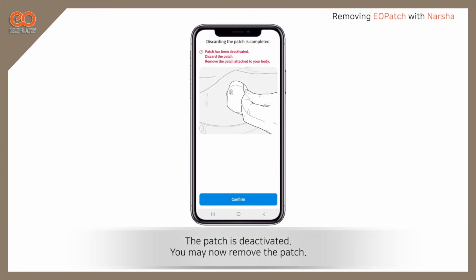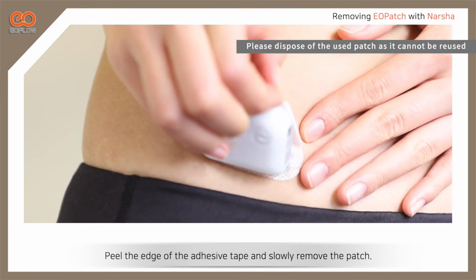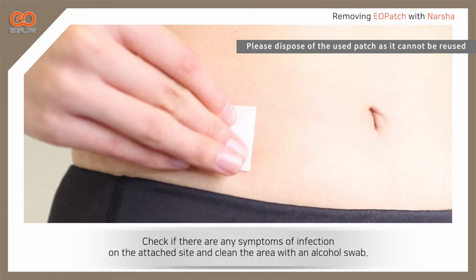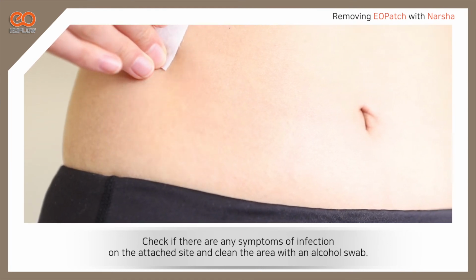The patch is deactivated. You may now remove the patch. Peel the edge of the adhesive tape and slowly remove the patch. Check if there are any symptoms of infection on the attached site and clean the area with an alcohol swab.